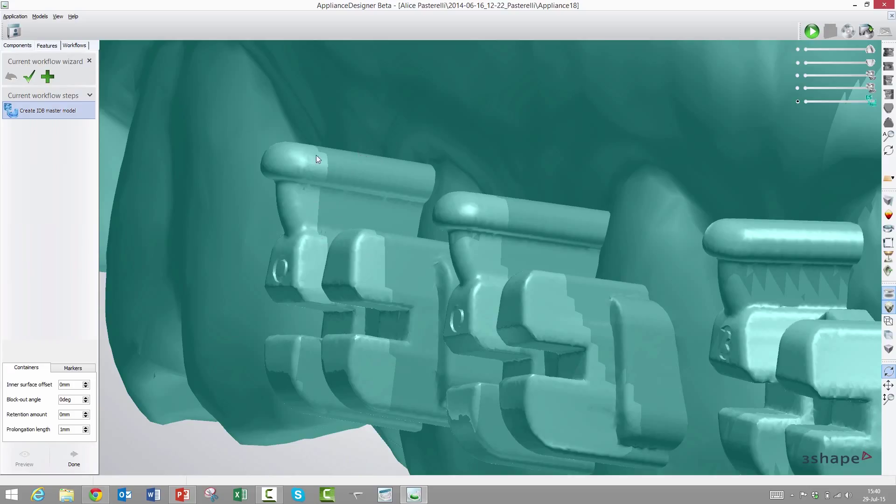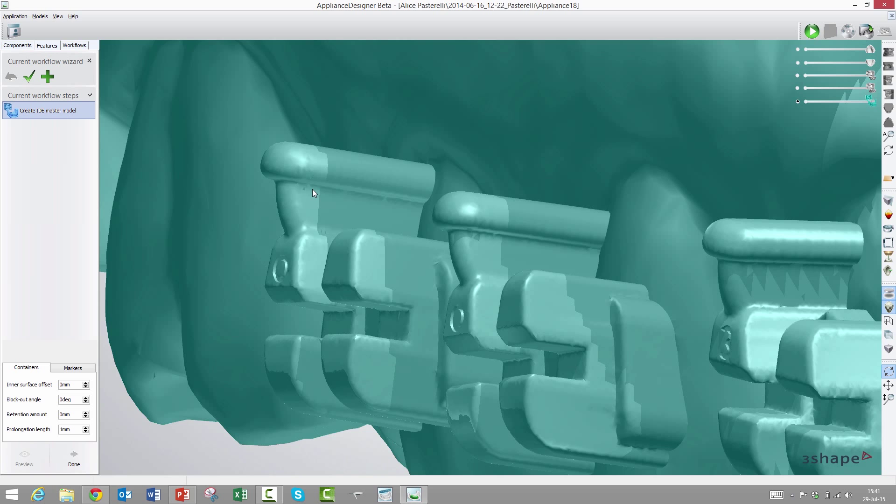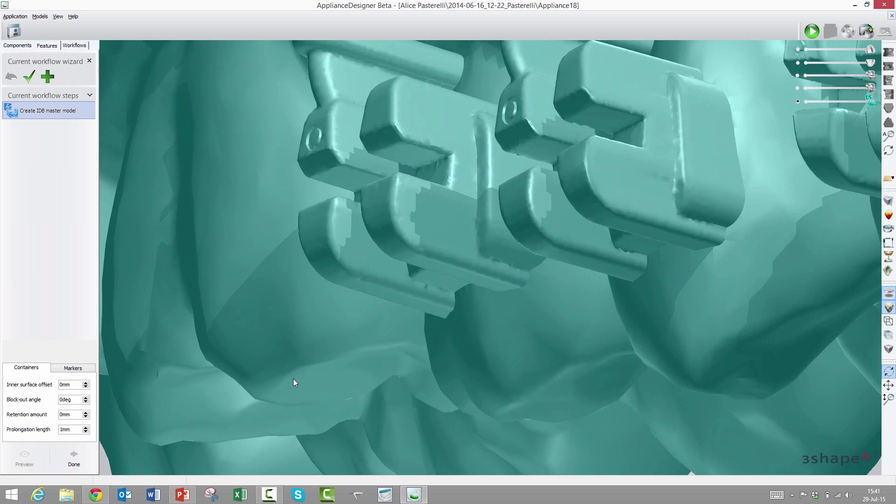When you vacuum compress your tray on top of this and you have a little retention, you will get this clicking effect when you click in the bracket into the finished tray. You get a sensation and now it's fully seated. If you don't get the click, it's not seated all the way to the bottom. That makes it very secure for both the lab and clinic to know that it's seated properly.